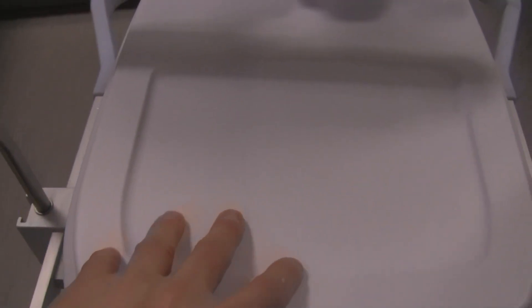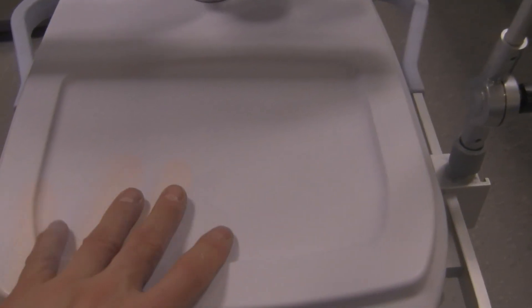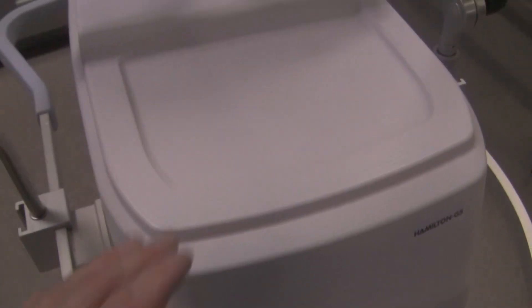A little flat surface here. I guess you could put stuff there if you really want to. Paper or whatever. We don't really put anything on our ventilators at all except maybe the cuff pressure checker device. It's got this little bar around it in the front. The bar is used to support support arms like that one there for the ventilator circuit or that one for the water bag.